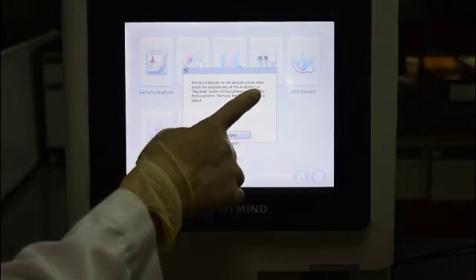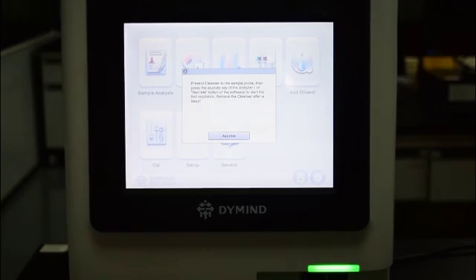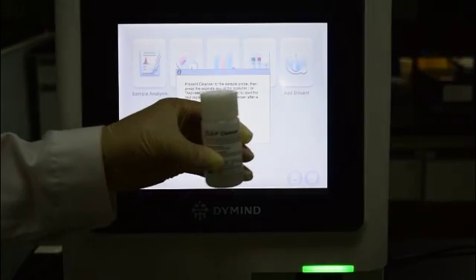Follow the instructions and present the cleanser to the sample probe, and press the aspirate key of the analyzer.